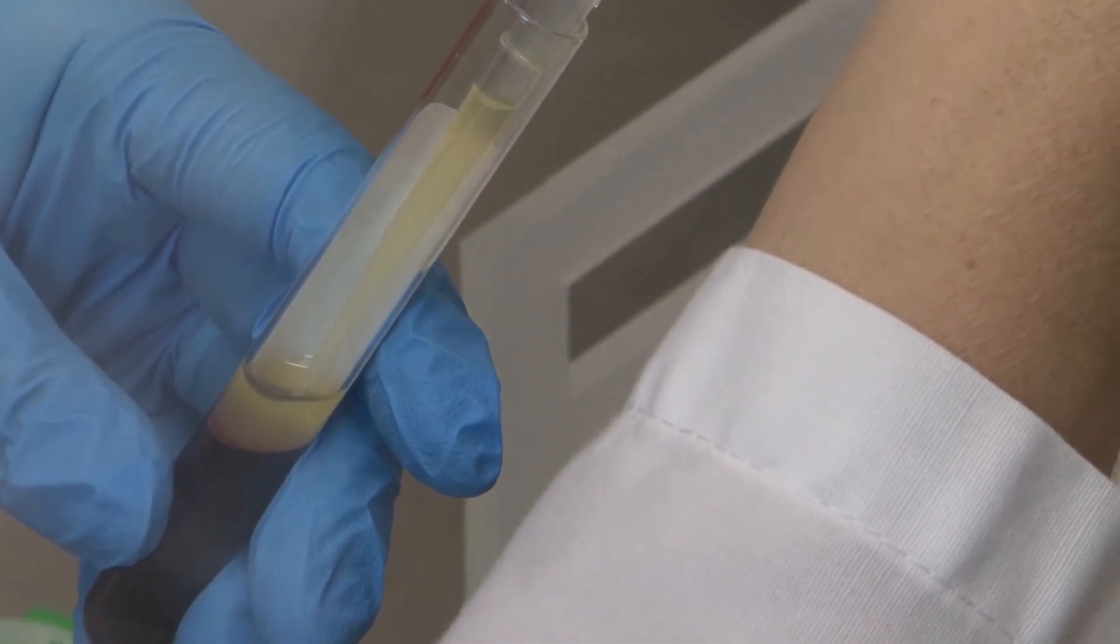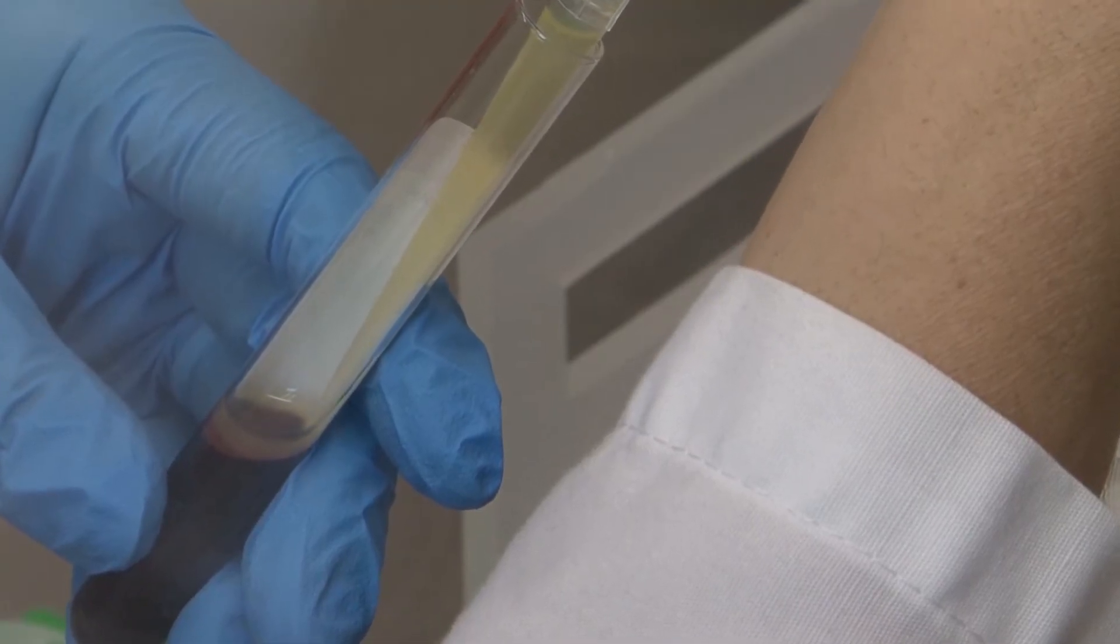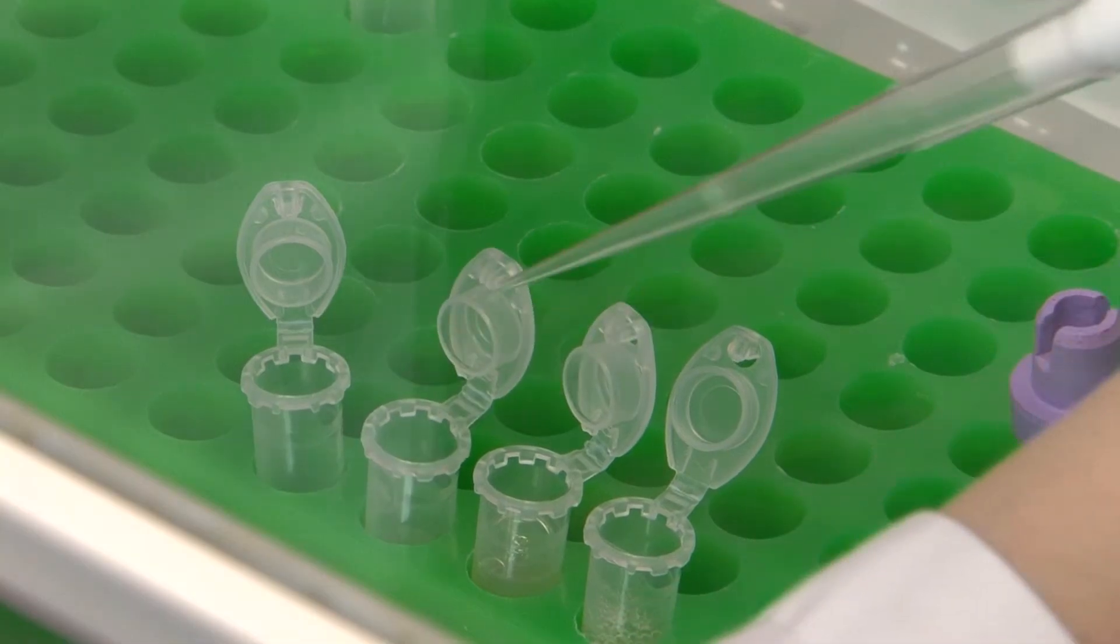The closer you get to the buffy coat layer, the more careful you will need to be to avoid disturbing it. Repeat this procedure until no plasma remains.